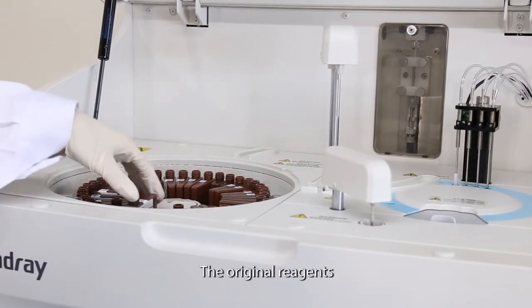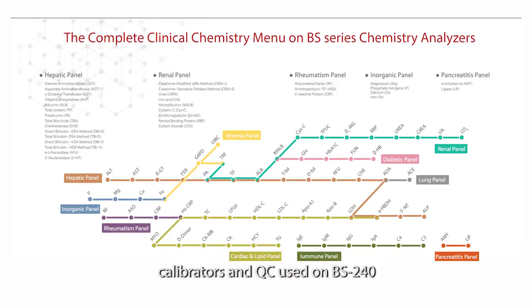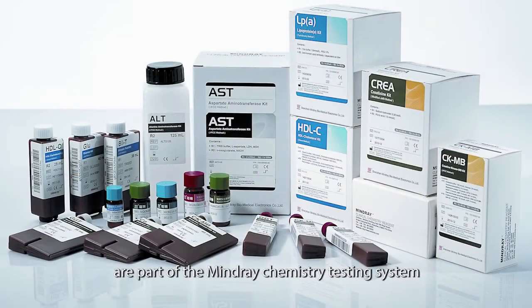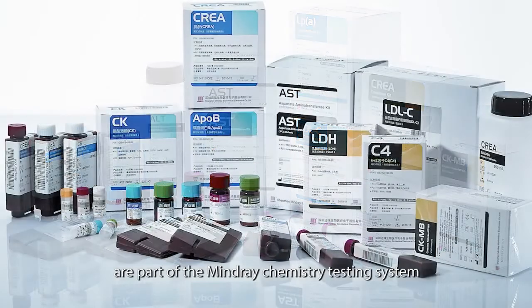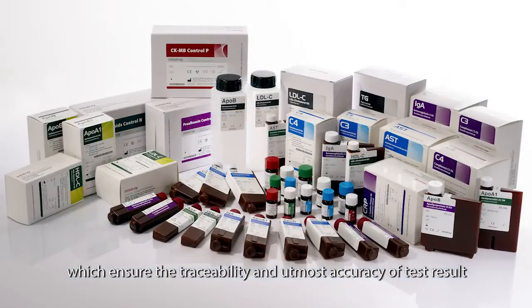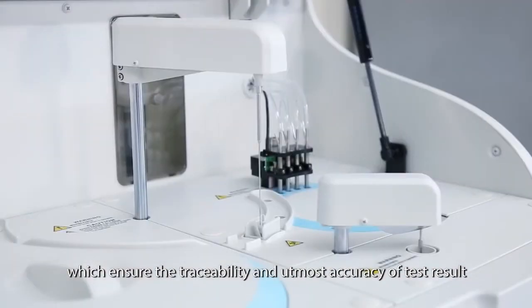The original reagents, calibrators and QC used on BS240 are part of the Mindray chemistry testing system, which ensures the traceability and utmost accuracy of test results.